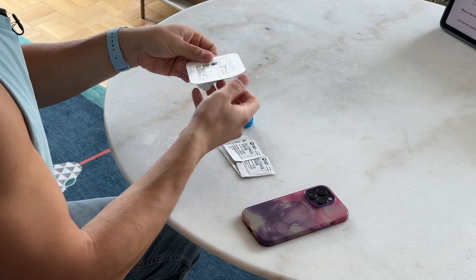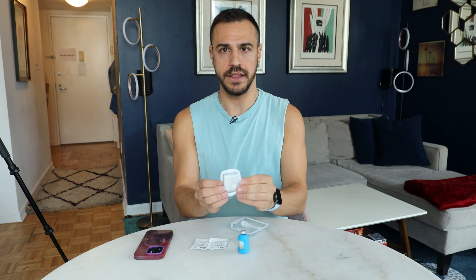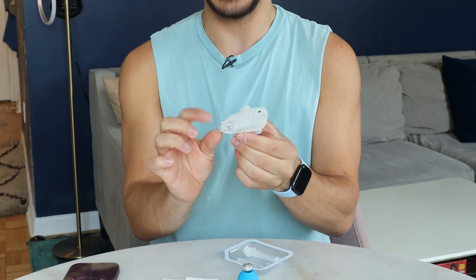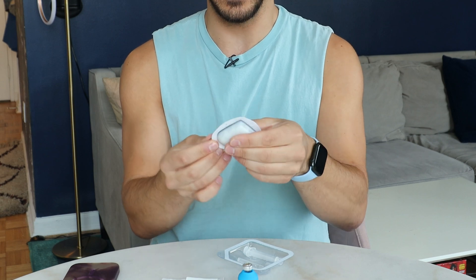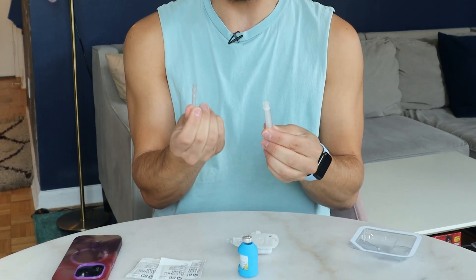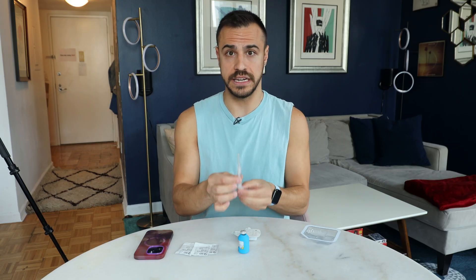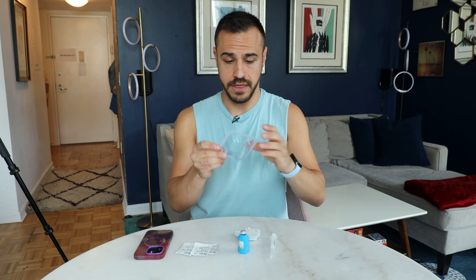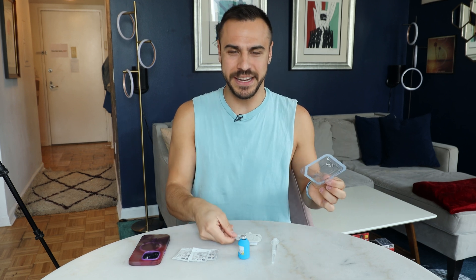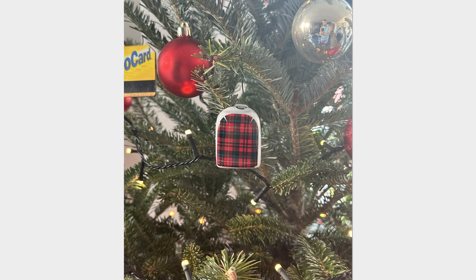We've got one right here in this package. We have the Omnipod pump right there, and there is the adhesive around it, and there's this tab. You don't want to take off the tab yet — that is for later. Then next in this package, you've got a needle. There's the front part which has the actual needle, and then this is the syringe. You just twist that on and then it is ready to go. This packaging is recyclable, so I always throw it into recycling. Unfortunately, the pods themselves go in the garbage — there's no recycling program, at least in the U.S.